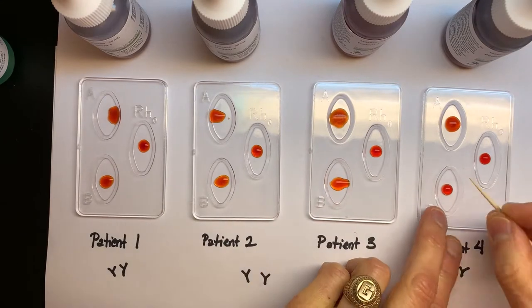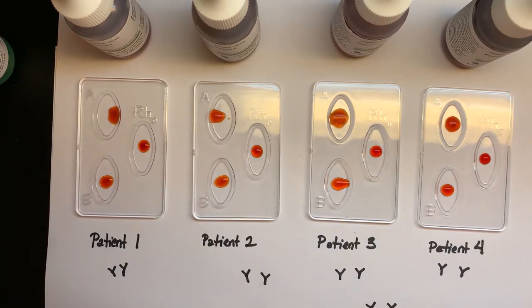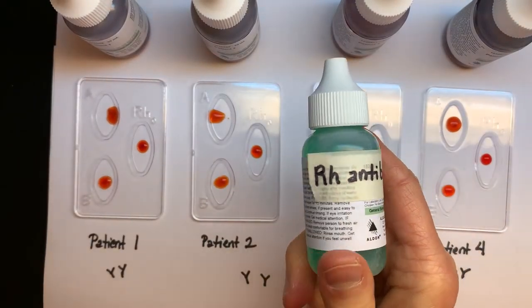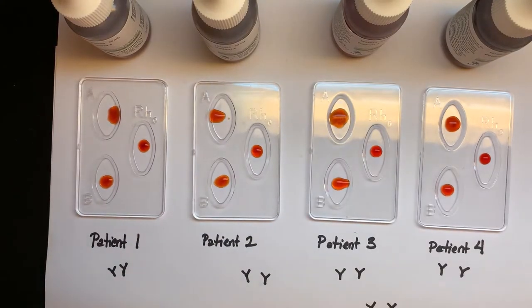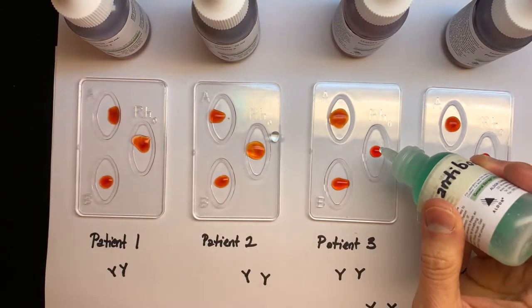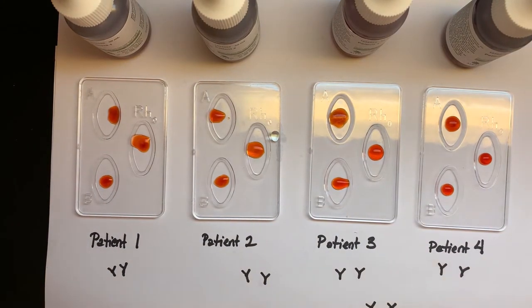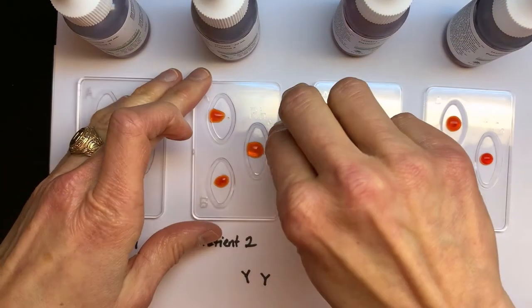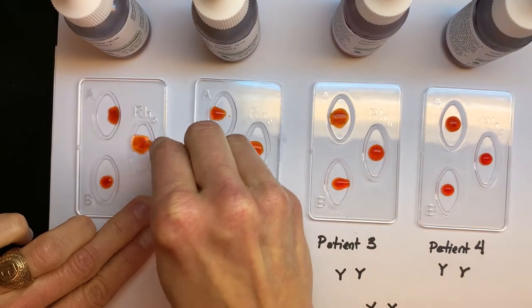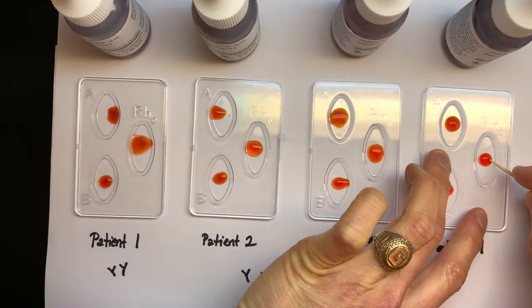A tends to agglutinate quickly, within a few seconds, and RH within an equivalent few seconds, but B tends to take a little longer — we may not see anything for B for up to a minute and a half. Here's our last antibody: RH. This bottle has things that are looking for cells that have the RH antigen on them. If they find a red blood cell with the RH antigen, they will bind to it — because that's what the immune system is doing.